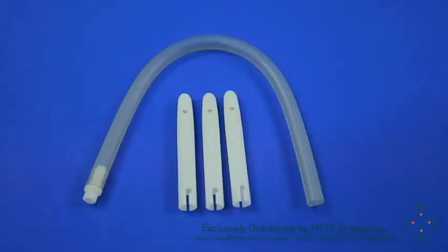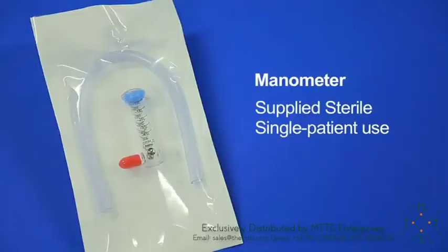Capsules are supplied in procedure packs that include three capsules, a piece of tubing, and a tube syringe adapter. The manometer is supplied sterile and is for single patient use. It was introduced to help the user obtain a consistent air suction pressure whilst using the correct amount of capsule against mucosa pressure.